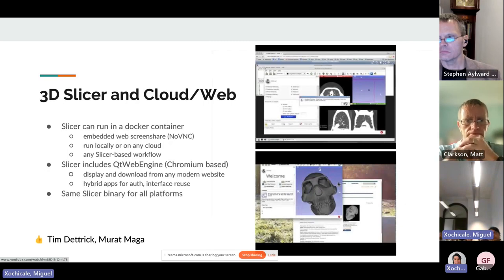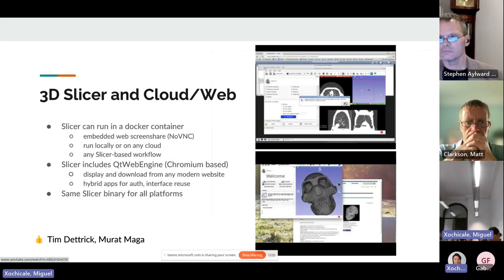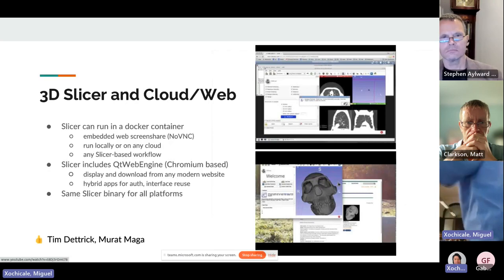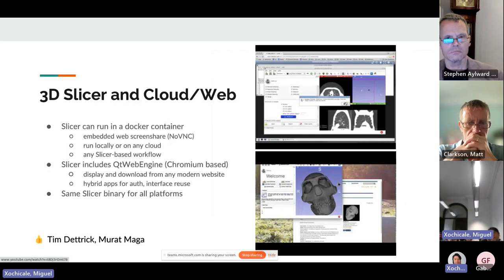There is a lot of flexibility. Slicer can run in a Docker container — you can run a virtual desktop inside the Docker container — and architecturally it lets you integrate processing modules and rendering things inside a container, meaning you can run on Kubernetes clusters. As a flip side, Slicer also comes with a QT web engine, which is basically Chromium. That means you can do things like embed a well-established web page — for example, MorphoSource, a repository of scanned specimens — and because Slicer is hosting that web page, all the hooks are there to add a button to download directly into Slicer and interact with it. Lots of possibilities.